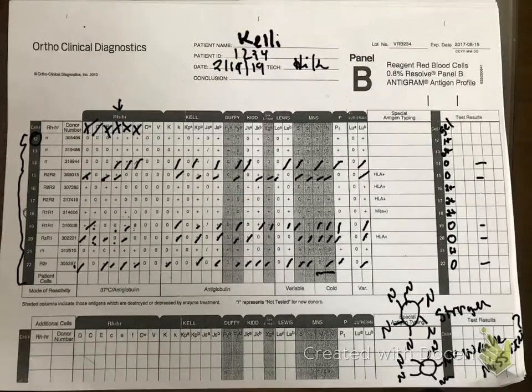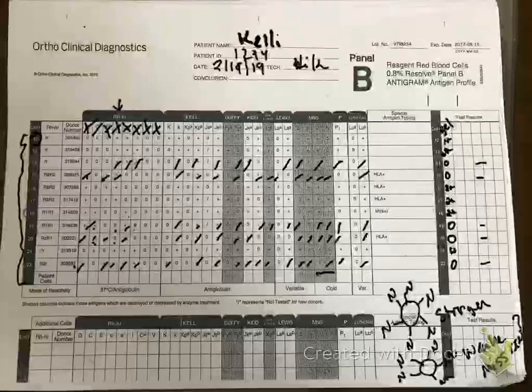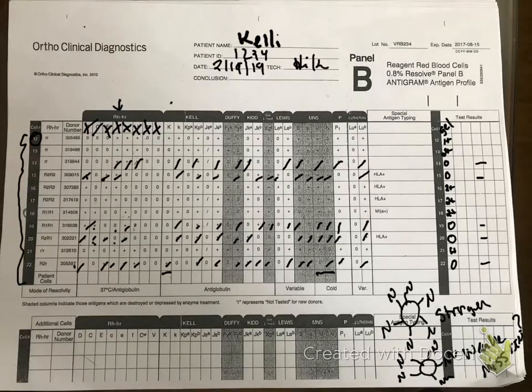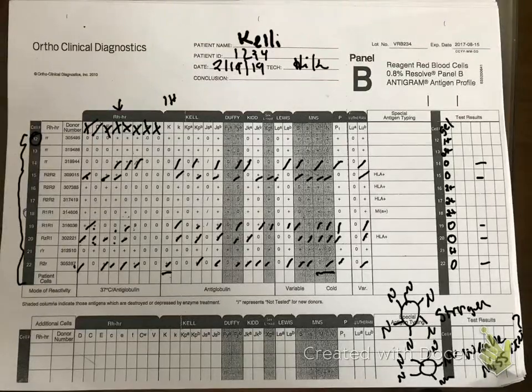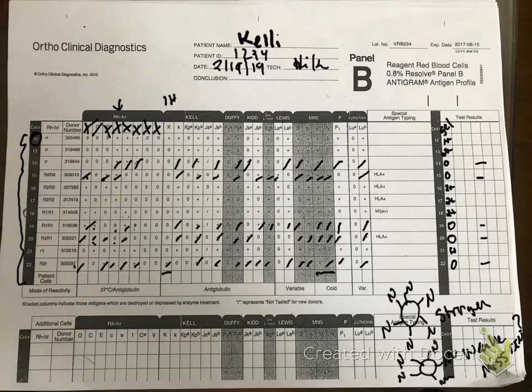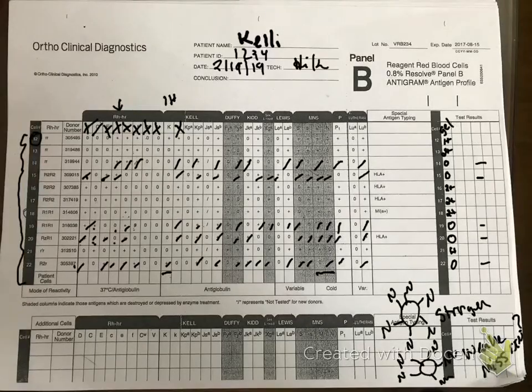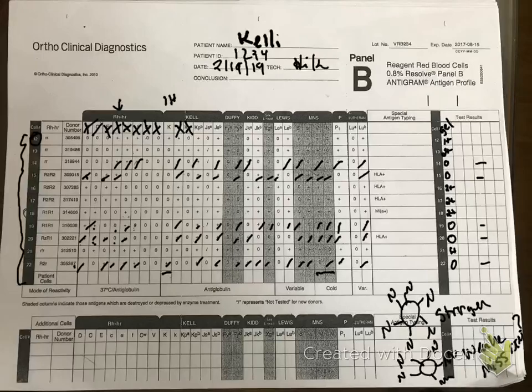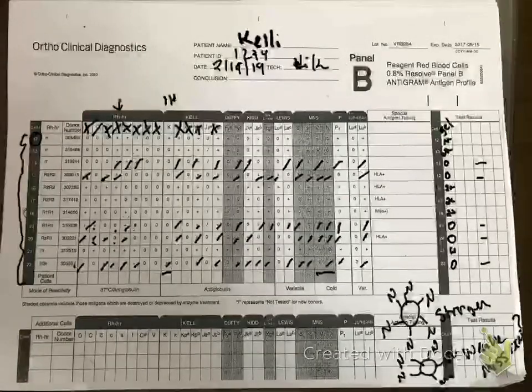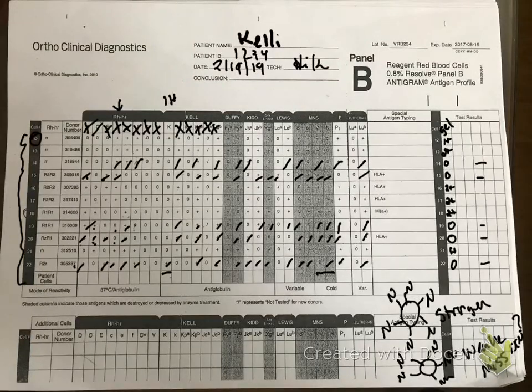CW is considered low frequency — no cell has reactivity there, so we rule it out. Same with V. For big K, I only have one homozygous rule-out, so I flag that with '1H' — I need another rule-out. Little k (Cellano) has four rule-outs — fine. KPa is low frequency, we don't usually worry. KPb and JSb are high frequency, we don't usually worry about those either. JSa is low frequency.